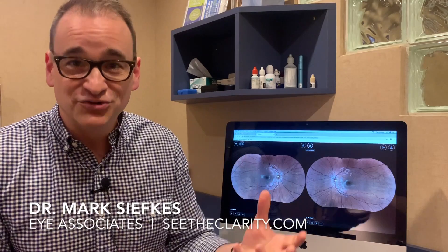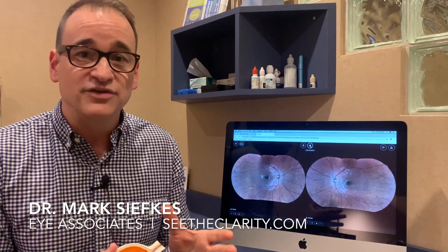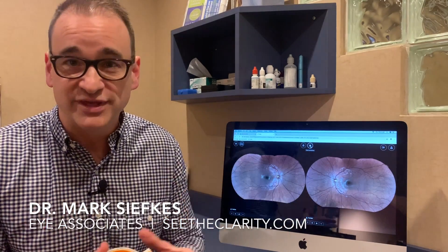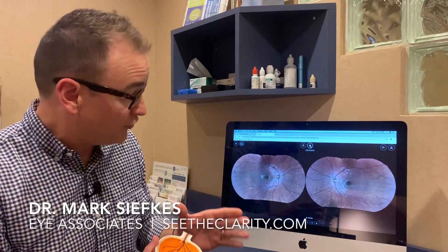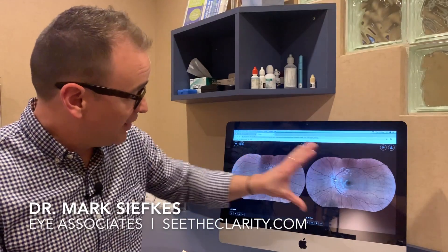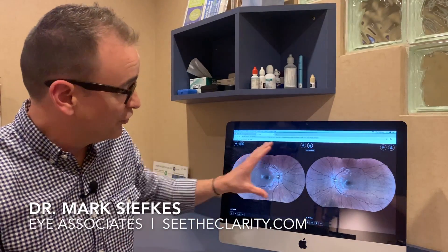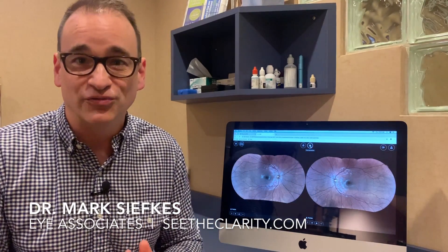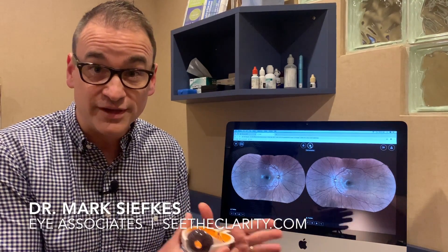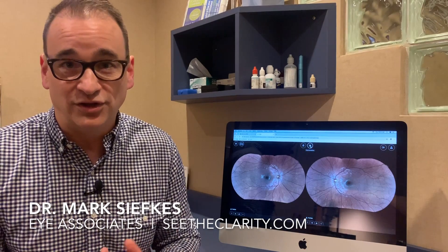Glaucoma, macular degeneration, diabetic changes if someone has diabetes. It really has enabled us, in the year or so that we've been using this technology, to get a view that we were not able to get in the past. It also allows us, over the years — we take these images every year — to follow any sort of progression for any type of eye condition or disease. We can pull the images up side by side to see if anything's changing over the years. It's just been a fantastic technology to make sure someone's eyes are healthy, and if there is an eye health issue, to follow that in great detail over time.